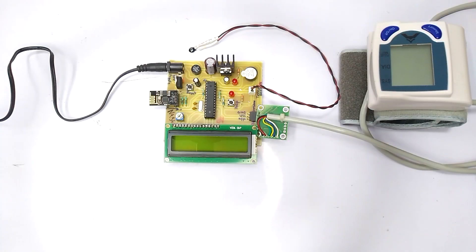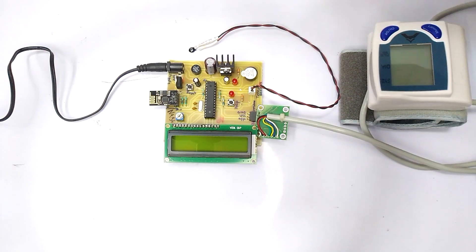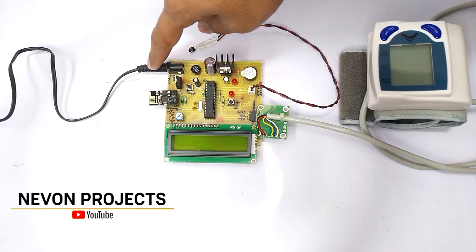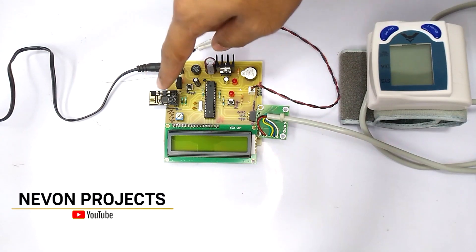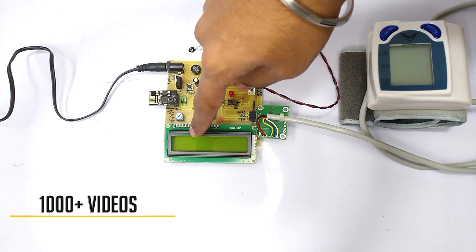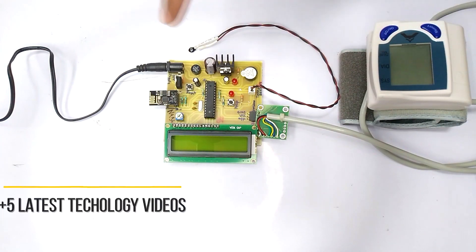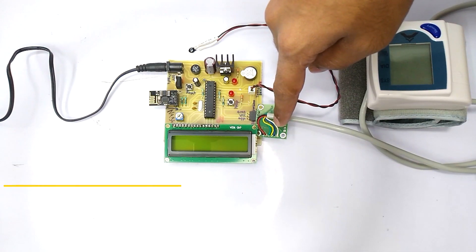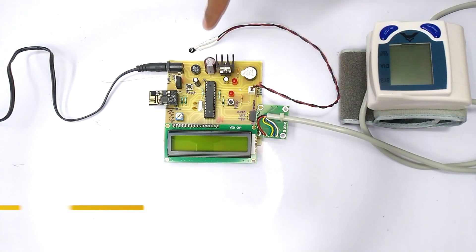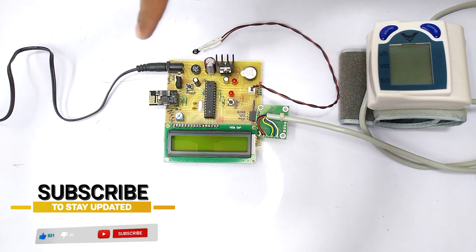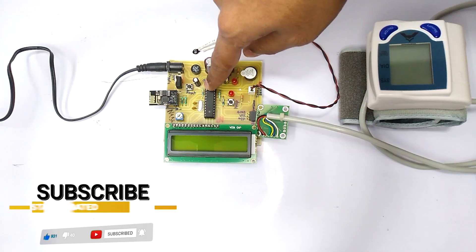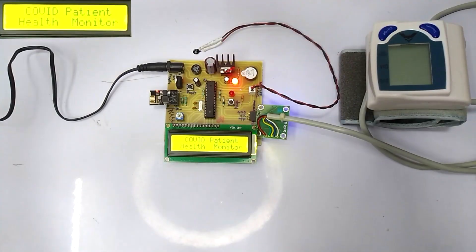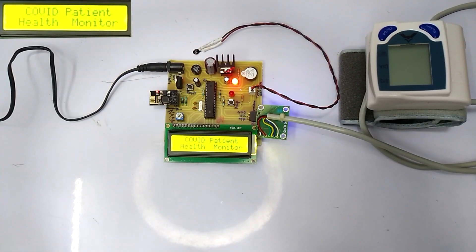Let's see what are the components of this system. This system consists of a power adapter, an IoT module, LCD display, blood pressure and heart rate sensor, temperature sensor, and an ATmega 328p microprocessor. So let's begin with the working of this project.